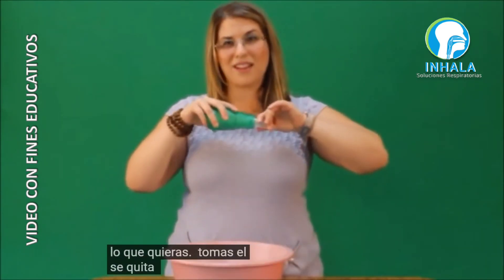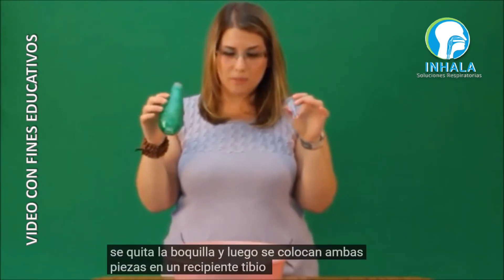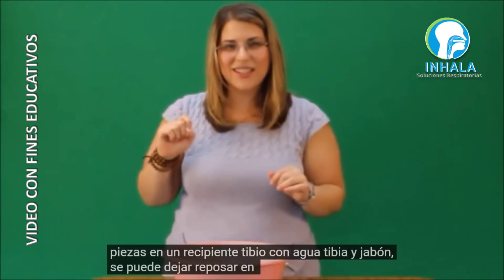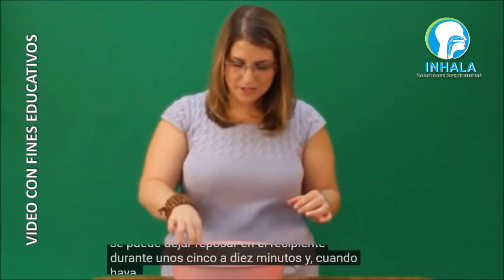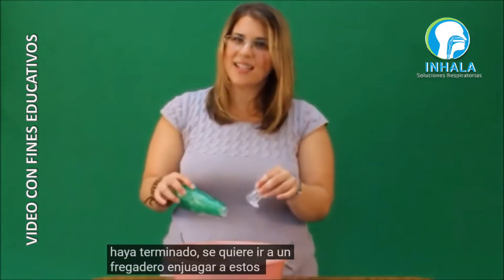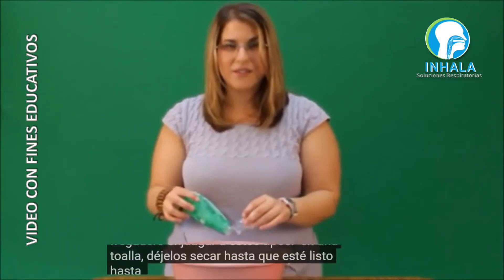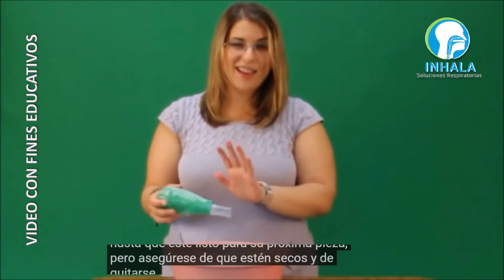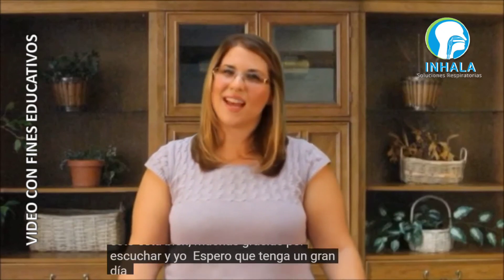To clean this acapella, take the mouthpiece off and put both pieces into a warm basin of soapy water. Let it sit for about five to ten minutes. Then rinse them out at a sink, put them on a towel, and let them dry until your next use. Make sure they're dry and that you get all the soap off before use.